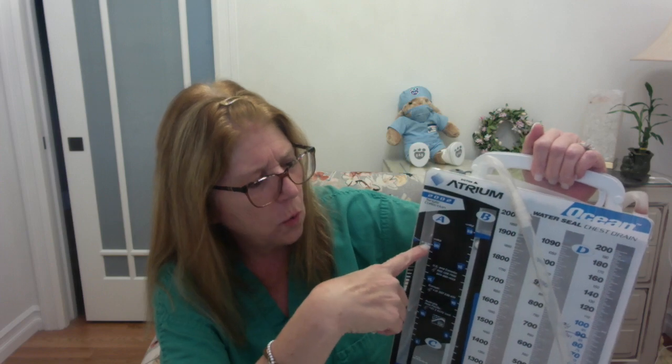And we're going to notice that after a number of hours, the water is going to start disappearing, right? And so you come into the room 8 hours later, and your water is now down to here. So this number is actually 17. So if the water is only here, that means that you're only applying 17 centimeters of water suction. And that's not what your provider ordered, right? They ordered 20. So you have to assess and make sure that you are always at that 20. So that means that you're going to have to replace saline, right? You're going to have to replace that saline up here, okay?